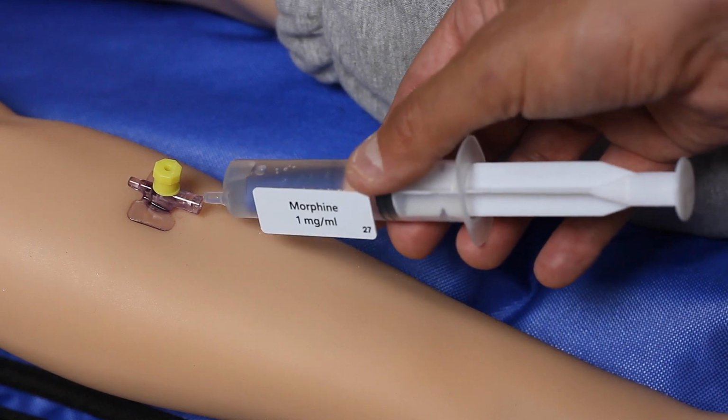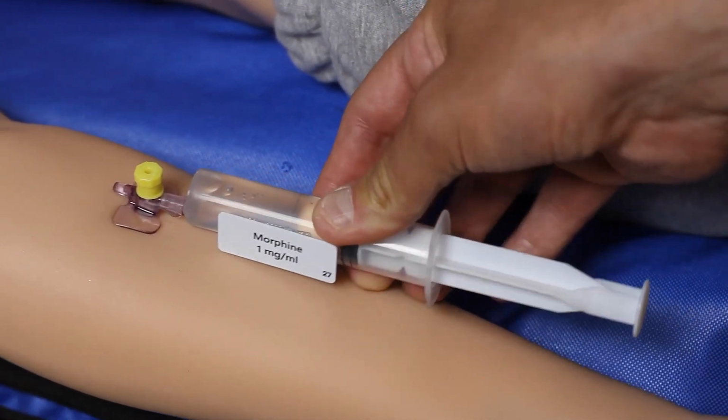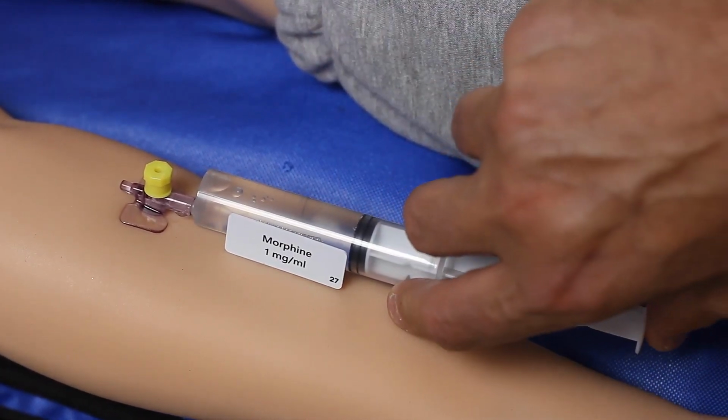Leonardo has an intravenous cannula, and with the use of RFID tags, you can actually give a simulated drug, and Leonardo can have a pharmacological response to that drug. You can also override that and give the response that you feel is appropriate. He has an intraosseous site for intraosseous injection on his left tibia.